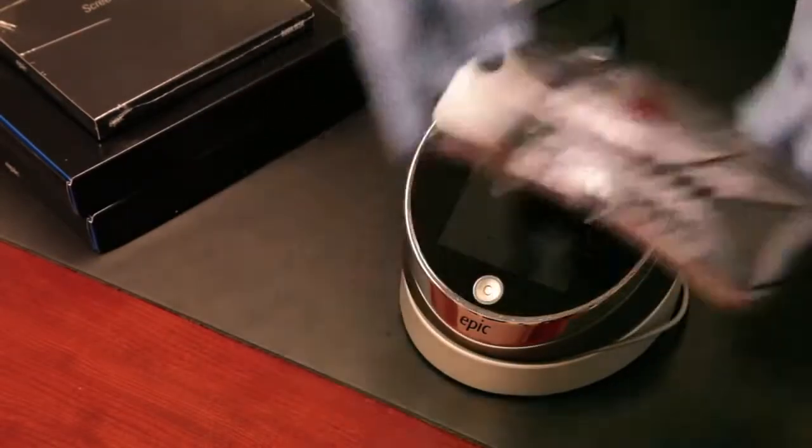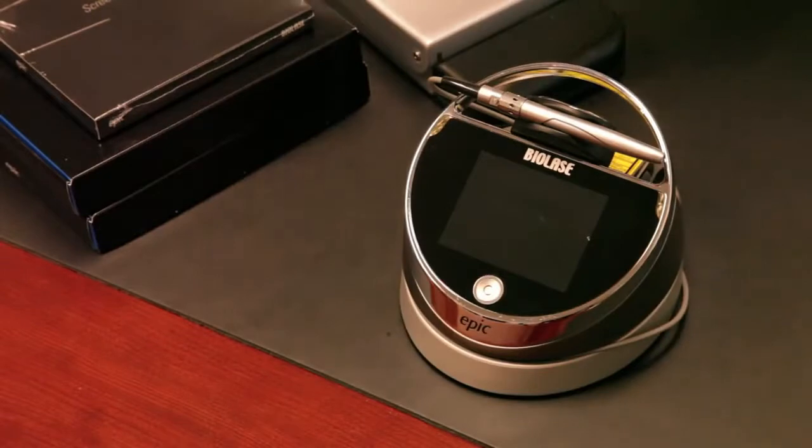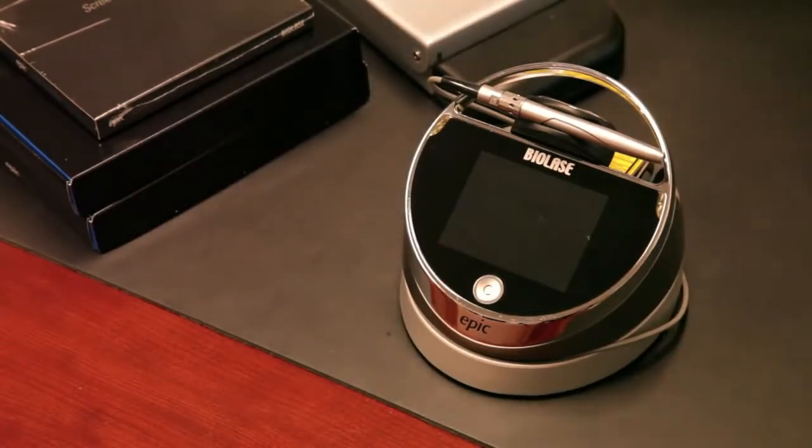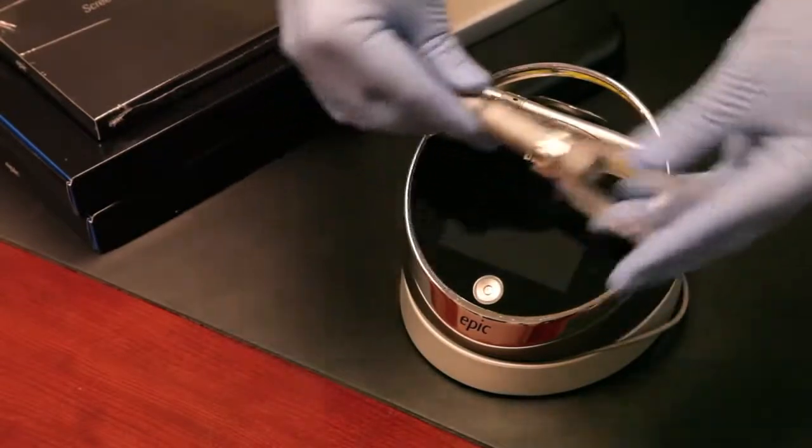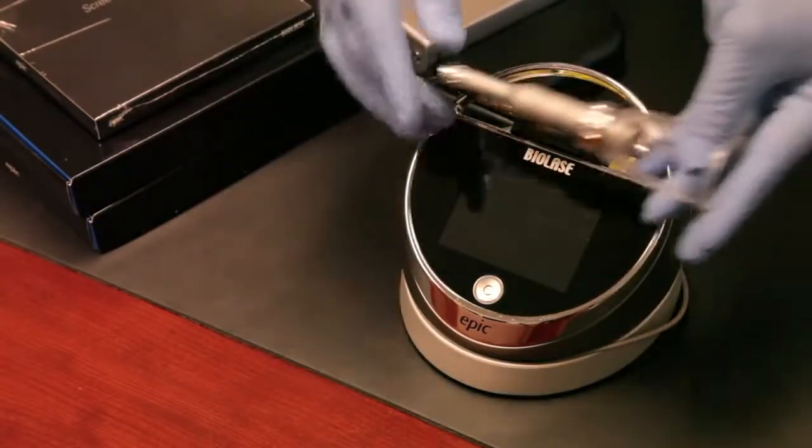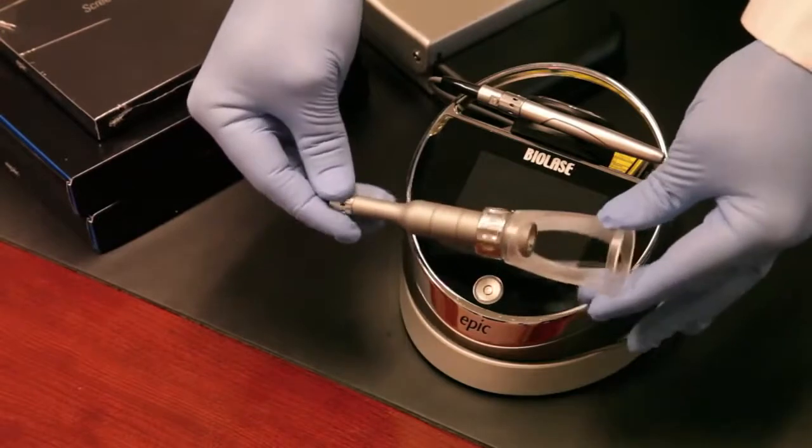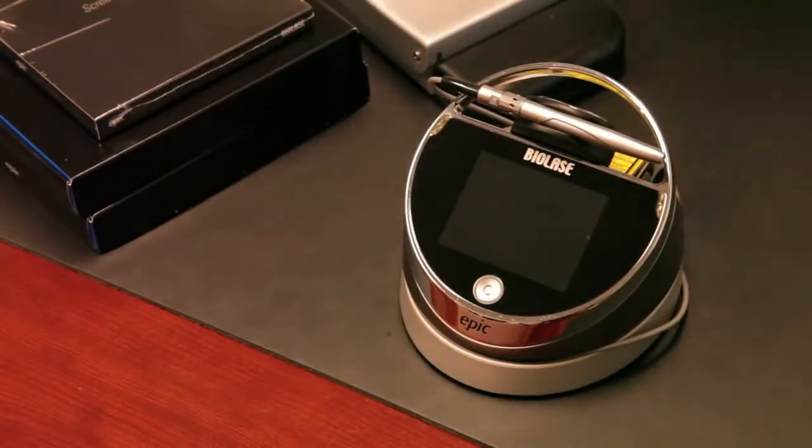We also offer you the opportunity to get a pain therapy package which includes this deep tissue handpiece which attaches right here to the end of the laser as well. We'll show you how that works in a moment.